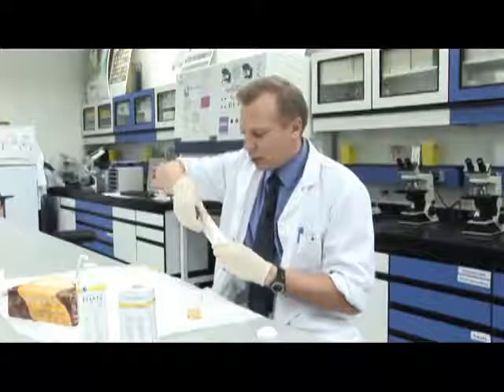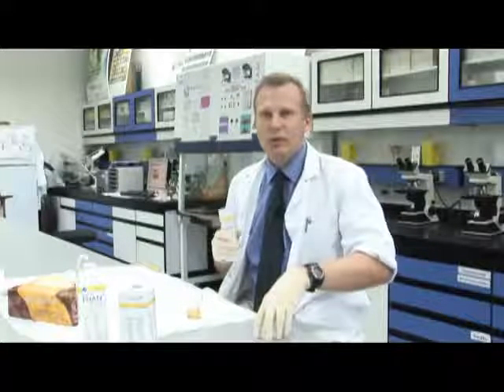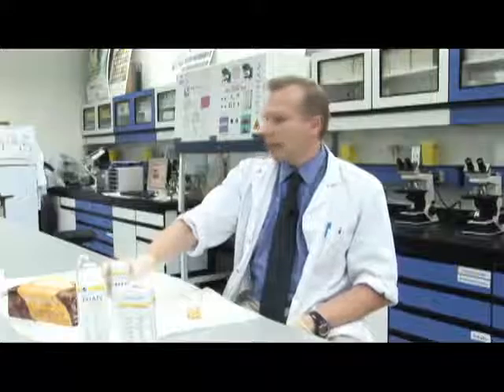Sometimes we bleed a little bit in our urine if we've been exercising very hard, maybe run a marathon or something like that, and that's not unusual. But if there's a very large amount of blood, then we've got cause for concern, and we'll do further tests. It's very useful as a non-invasive test we can do. We can easily get a urine sample and run a test, and we'll know in a few minutes if there's a problem, and then we can do other tests. And that's basically how the urine dipstick analysis test works.